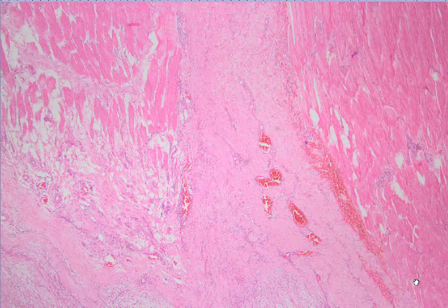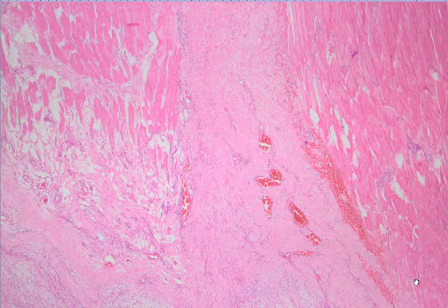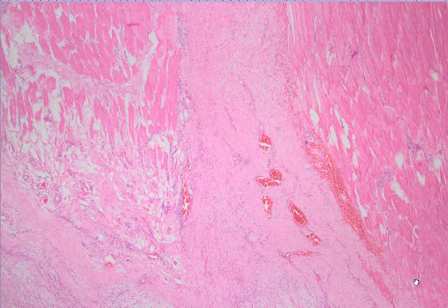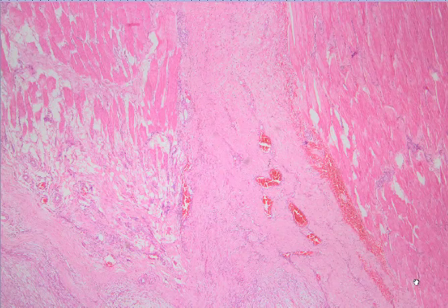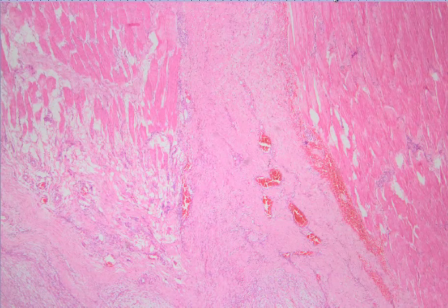This month I'm going to talk about two common soft tissue neoplasms which commonly fall into each other's differential diagnosis. The distinction is important because of the clinical management of the patient, because the diagnosis of one of these cases is nodular fasciitis and the other one is synovial sarcoma. And the first case is nodular fasciitis.